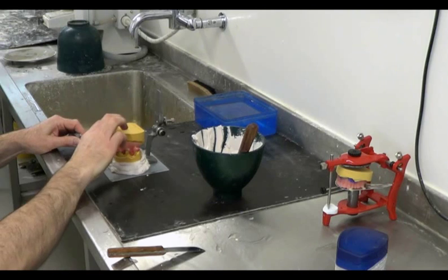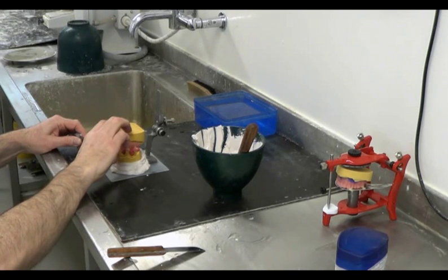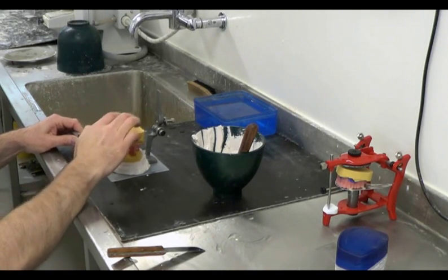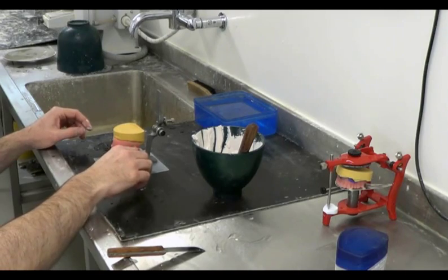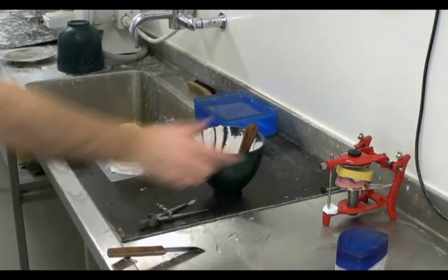We can do this with a set of dividers, by placing the two points of the dividers on the bench and checking that the raised point is touching equal points of the occlusal table in all directions.